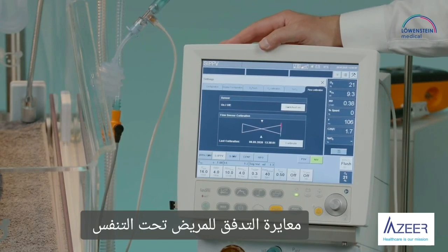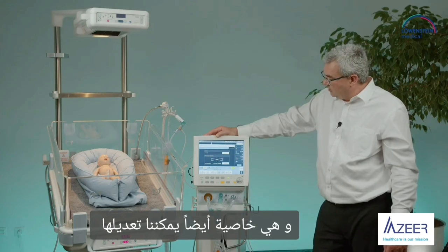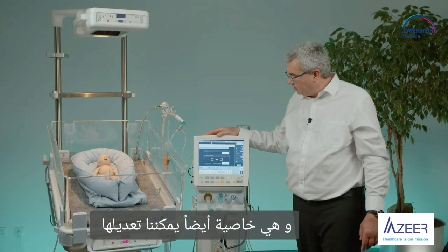Flow calibration is the opportunity to run a calibration under working process on the patient. This functionality is also something that can be worked out.